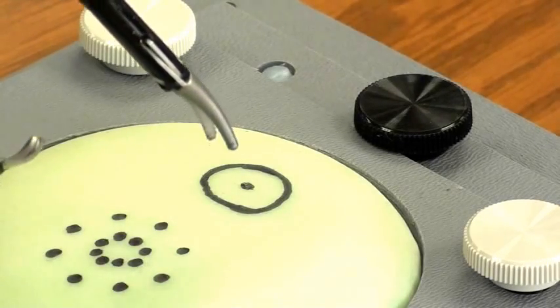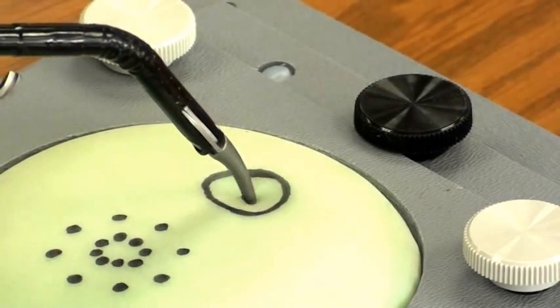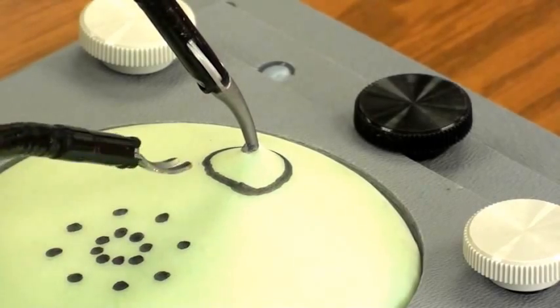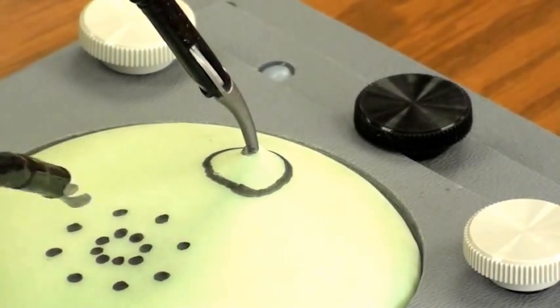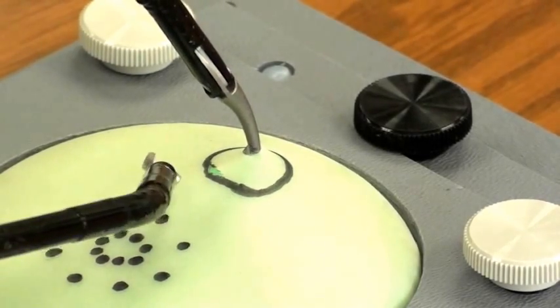With the autonomy dissector, grab the middle of the circle pattern. With the autonomy scissor, precisely cut around the circle pattern. Utilize autonomy's wrist articulation to achieve the optimal cutting angle.